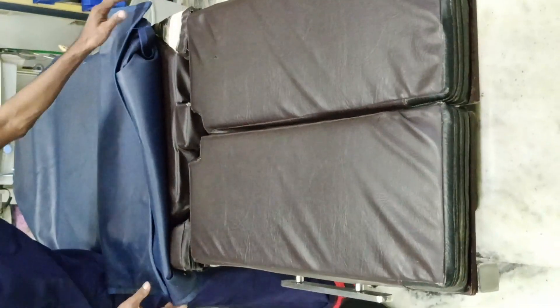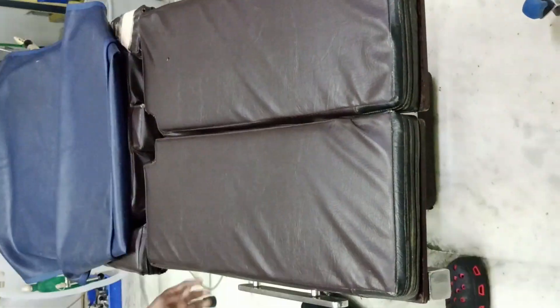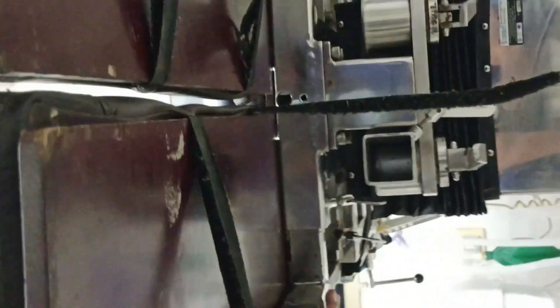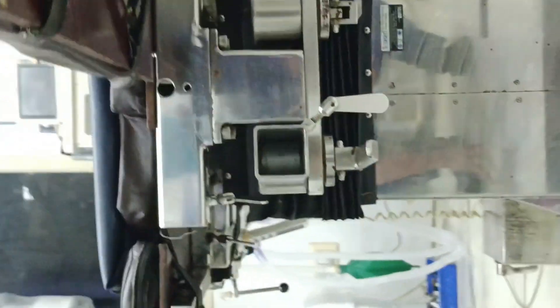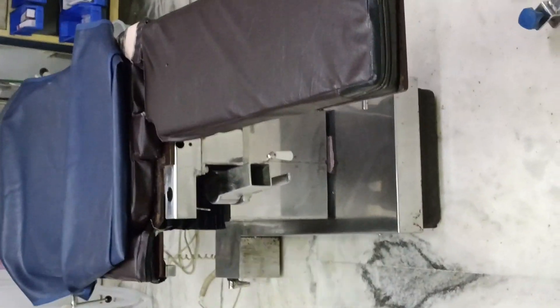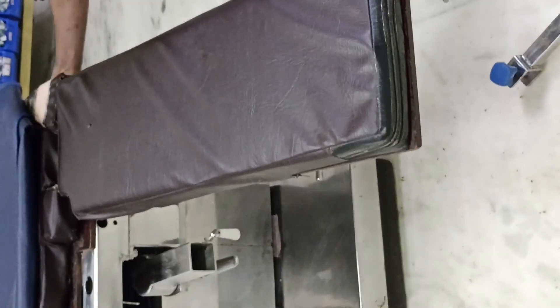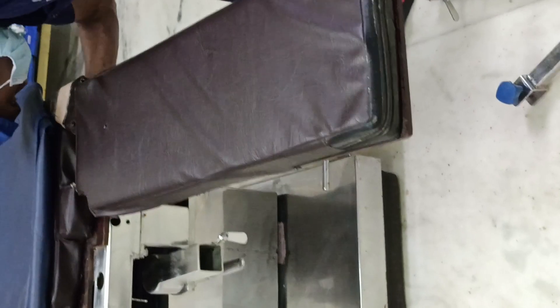Today we are going to see about the fracture table construct. This is an operation theater table. The first step is to break the table at this point. The specialty of the fracture table is that we can easily separate these parts.